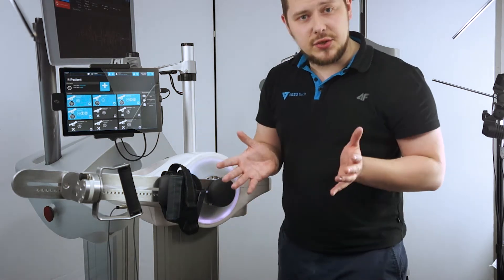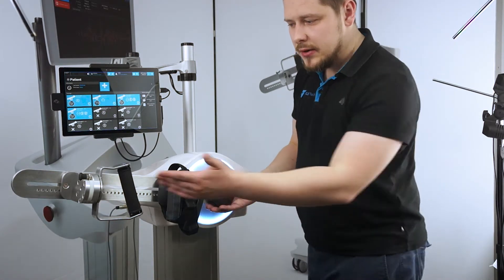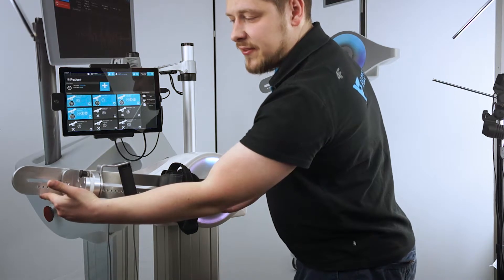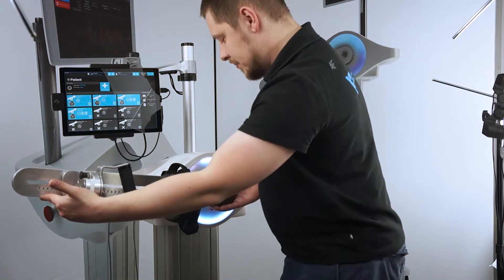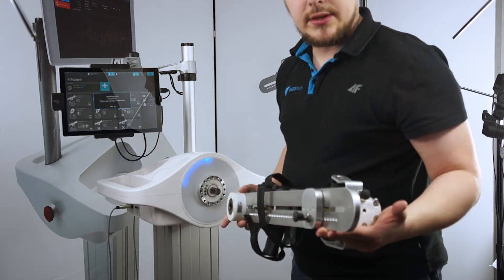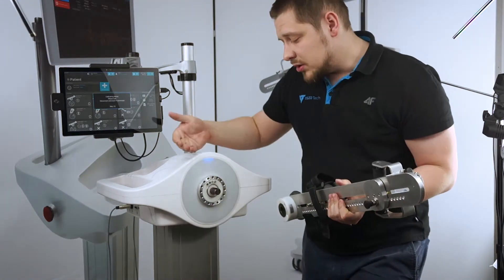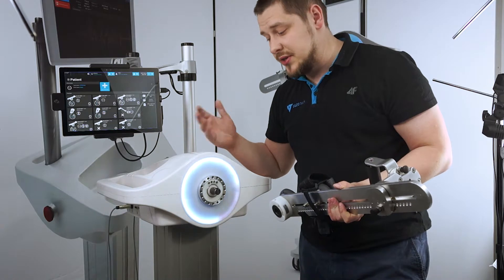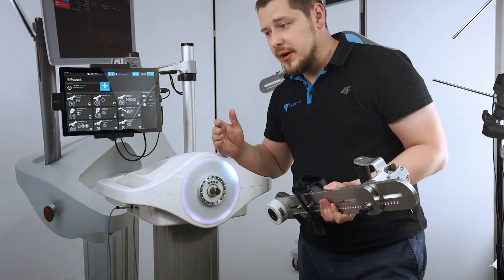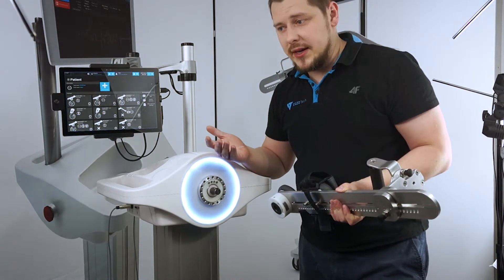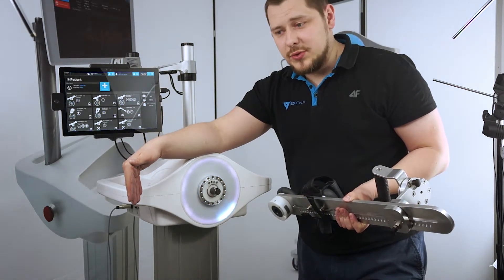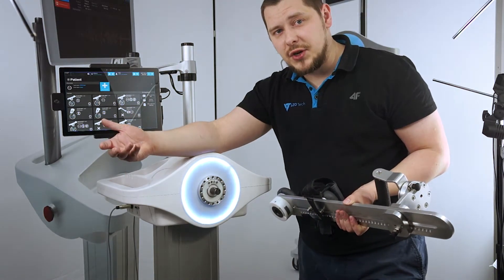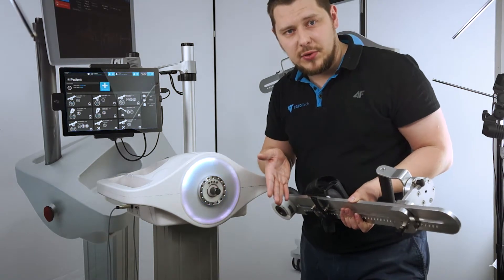I'll still use two hands like with any other extension. One here, one here. I'll gently lift this to compensate for gravity and pull this out gently. It'll automatically return to its upright position so you can connect the extension again or use any other one. But do remember that because it's a physical device, if a force is going downwards with gravity, it's generating friction and it will become more difficult to pull out.